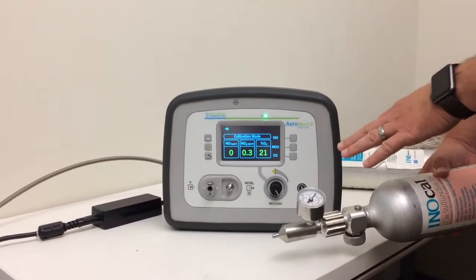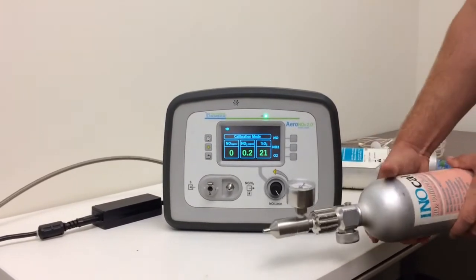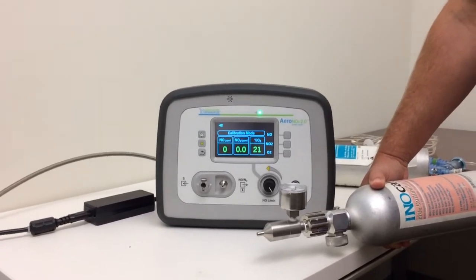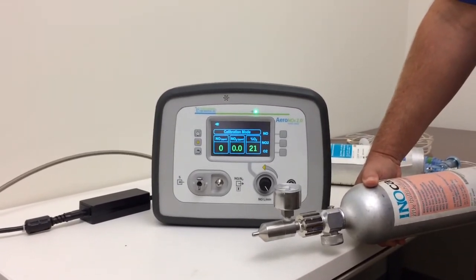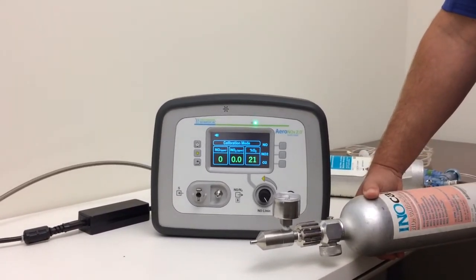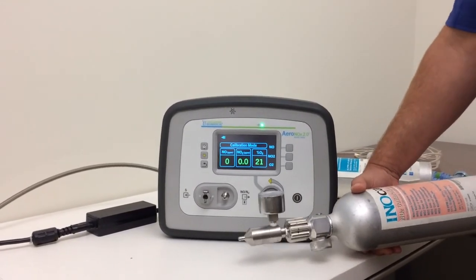That's your low-cal and your high-cal. For the high-cal, we tell everybody to do it once a month — the book says once a week, and they can decide based on their own policies and procedures. The low-cal we do before every patient and also before every high-cal. That's the zeroing procedure. Next we'll go into hooking it to the circuit.